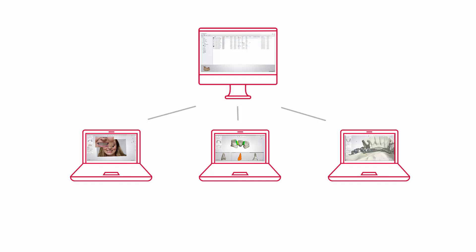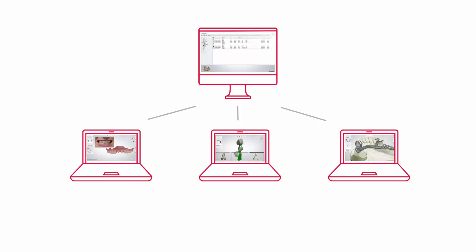You are not limited to work on a specific PC. Subscriptions are floating and directly shared between all PCs in the network. For example, a single CAD subscription can be used on any client PC, but only one at a time. You are able to easily share orders, states and files across multiple PCs.